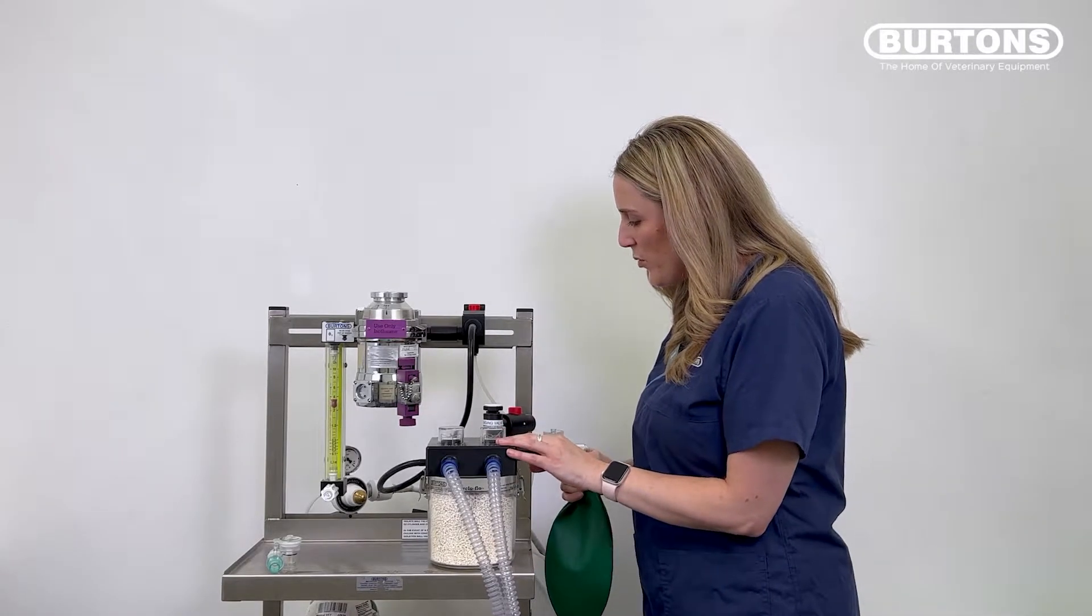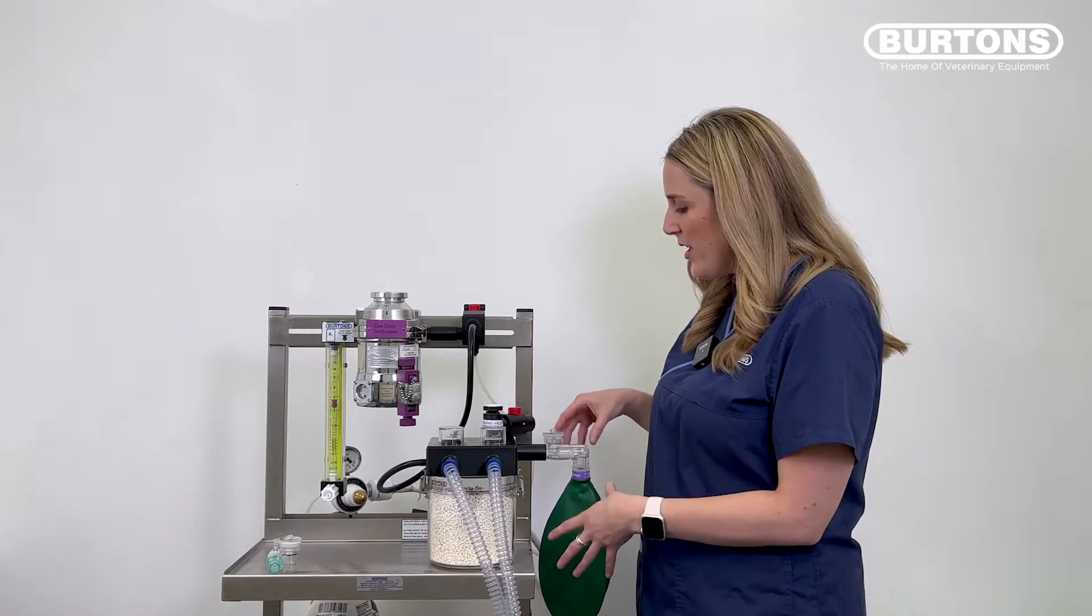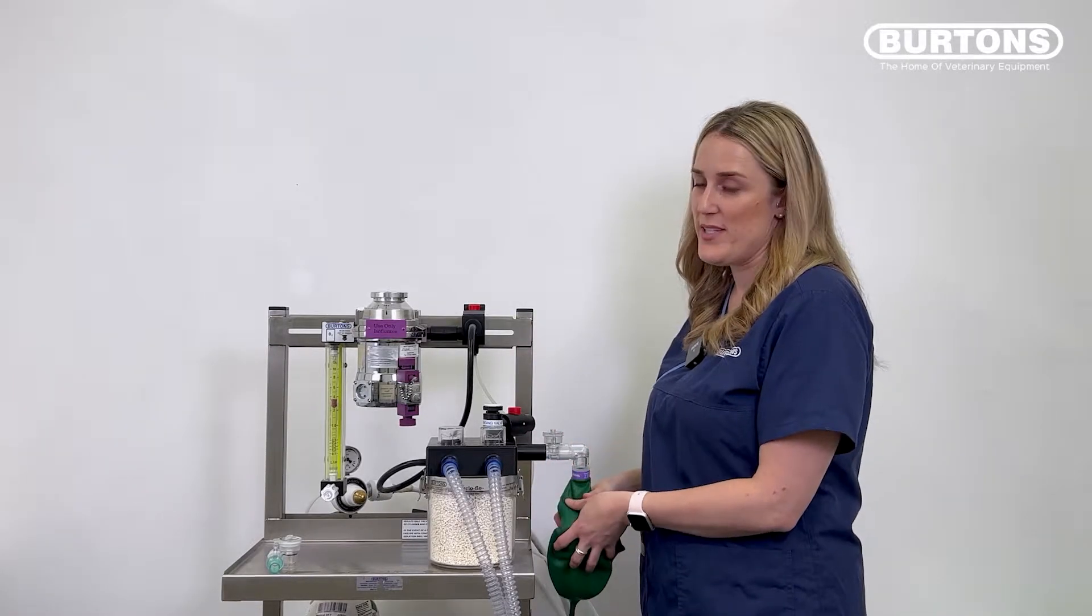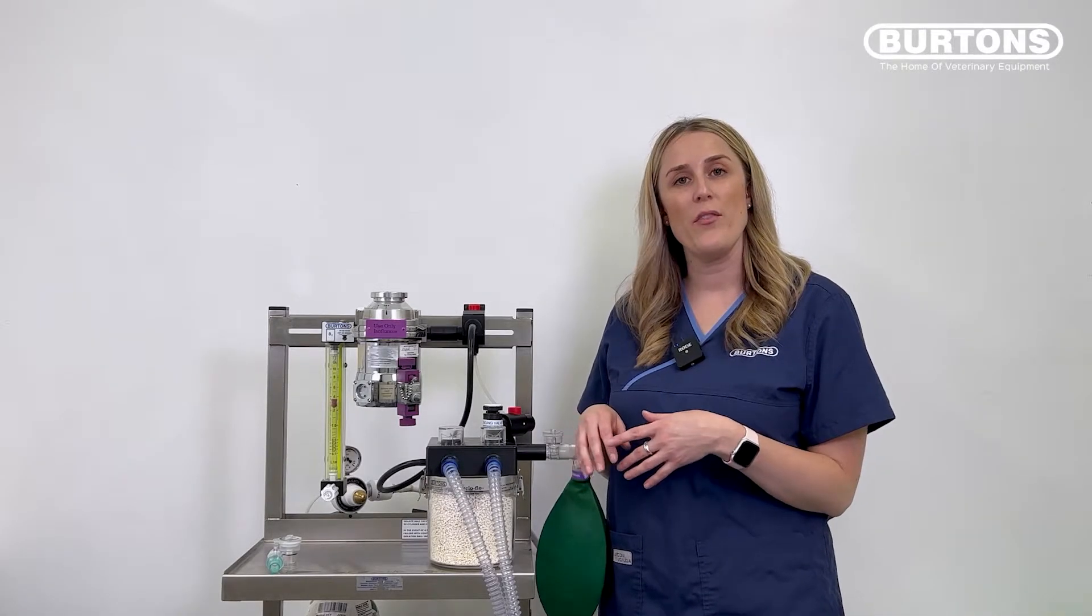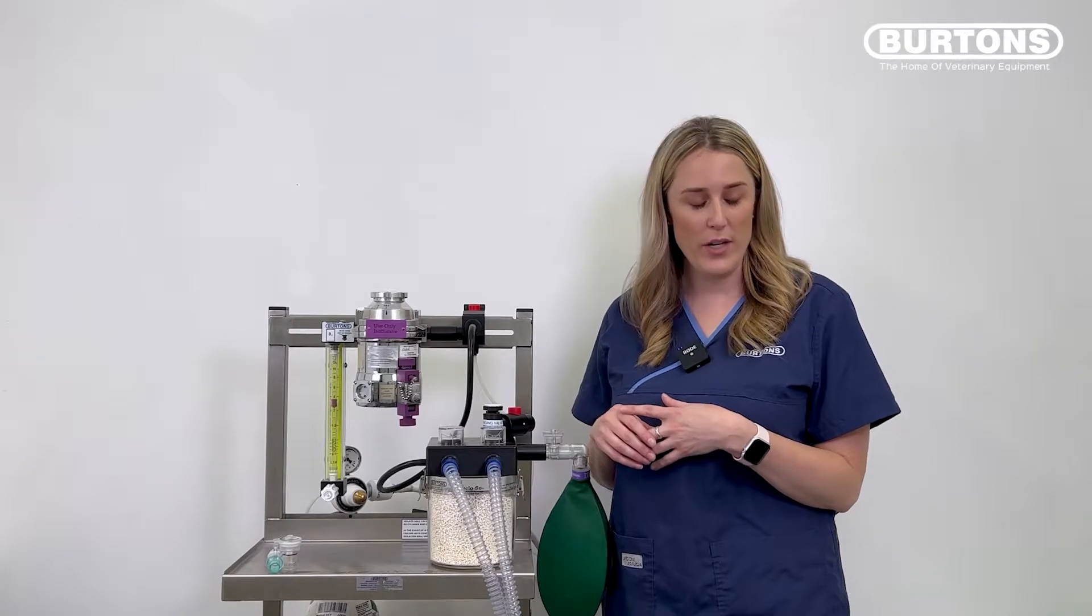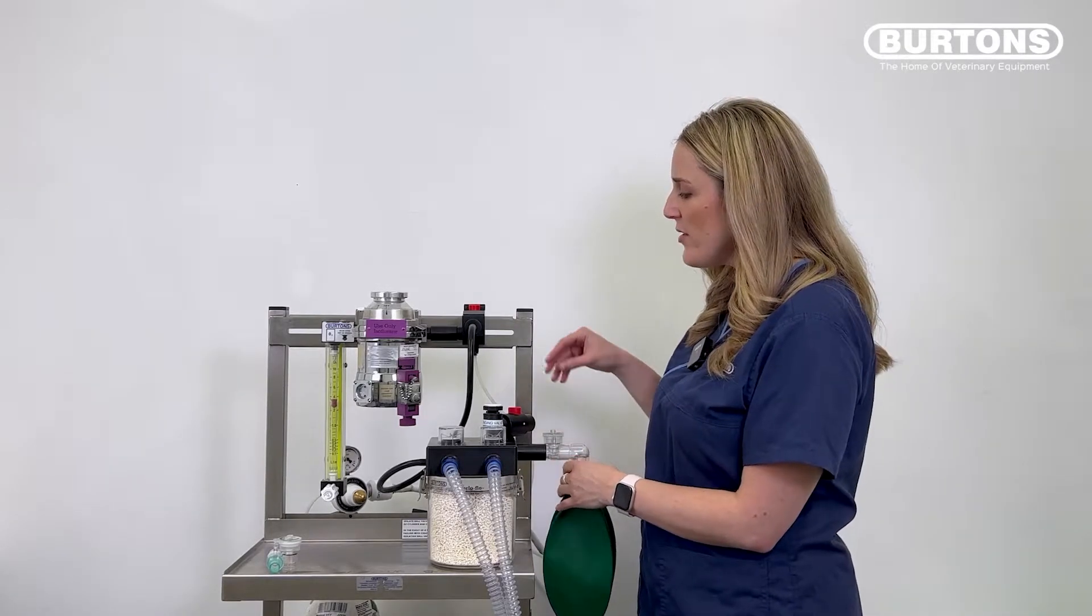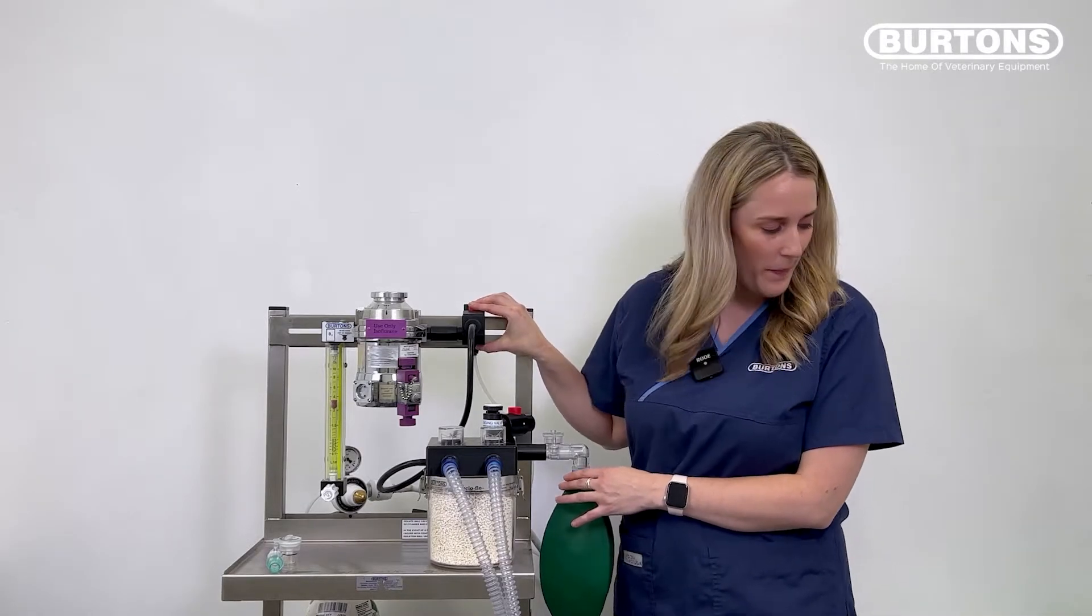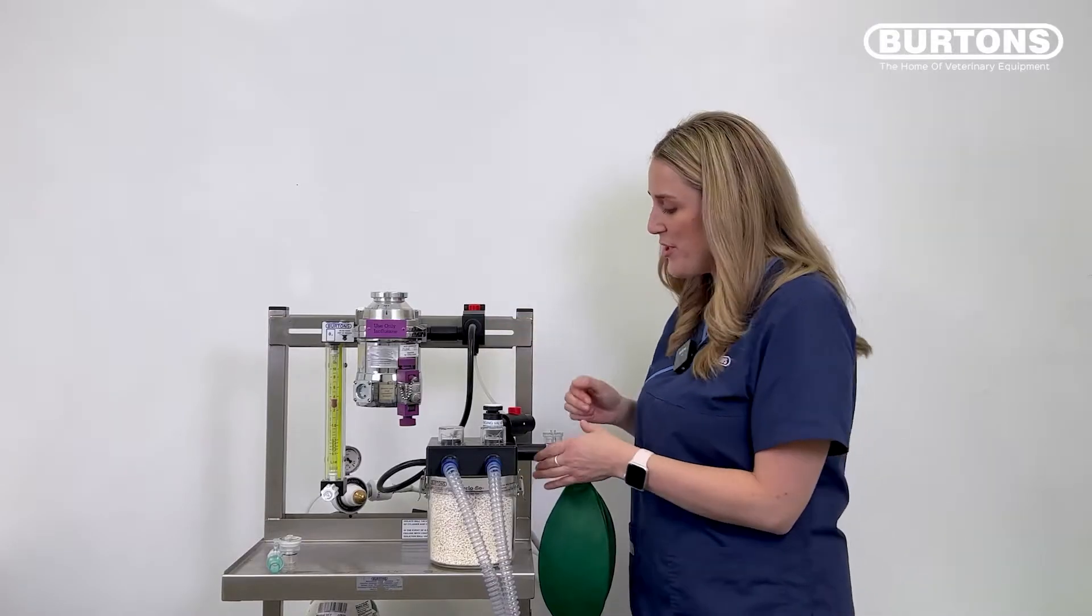So when it's time to give our breath all we need to do is close the APL valve by pushing the button, watch the manometer and as we squeeze that reservoir bag. Now I don't have a patient here in front of me but I do have one of our anoquins which is our patient manikin. So because the lung in our anoquin isn't full at the moment I'm just going to go and fill it up first.